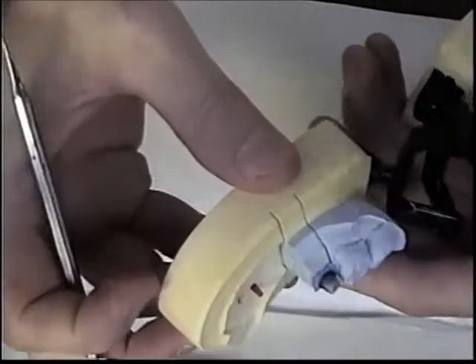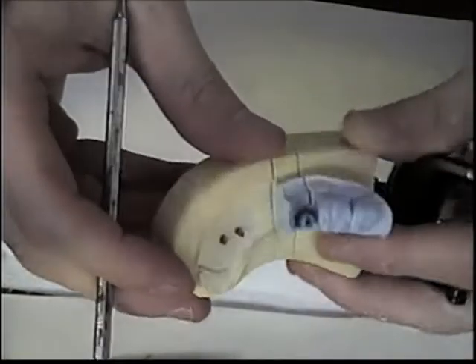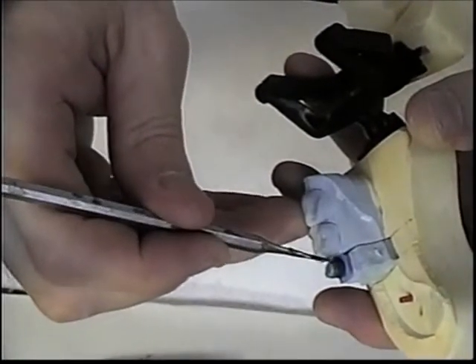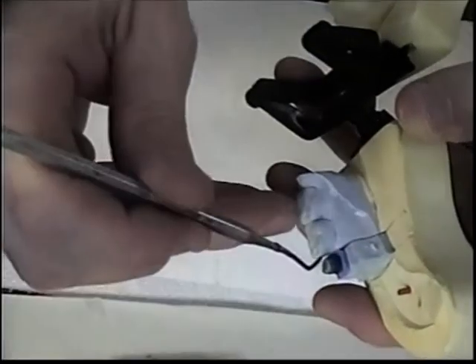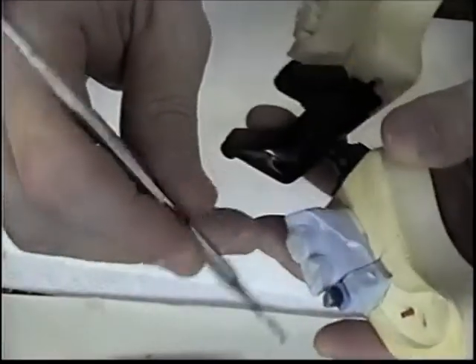As I described earlier, we don't need to build this one up here. All aspects look fine, so I'm just going to coat it. I'm not concerned about creating any margins at this point — I can do that in the gold when it's cast. I can use some high speed burrs or some stones if I want.